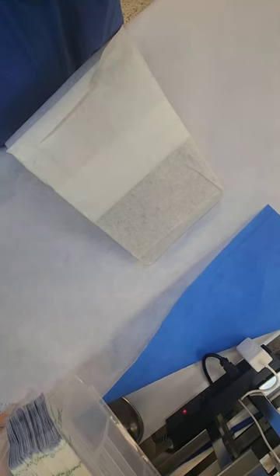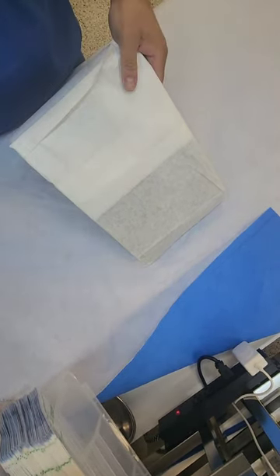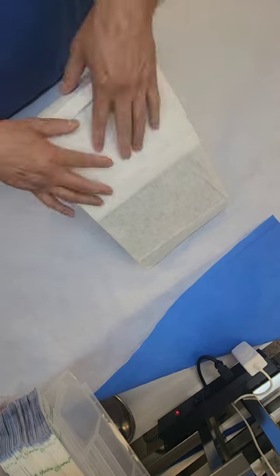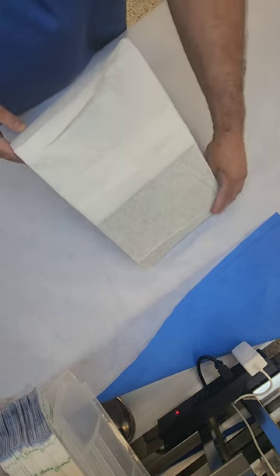What's going on guys, welcome back to WDYD CSP — What Do You Do as a Central Sterile Processor? I apologize for the angle, but this is the best I can get my camera, which is an overhead view. So as promised, I'm going to show you how to wrap a triangle a different way than the way you normally see it.